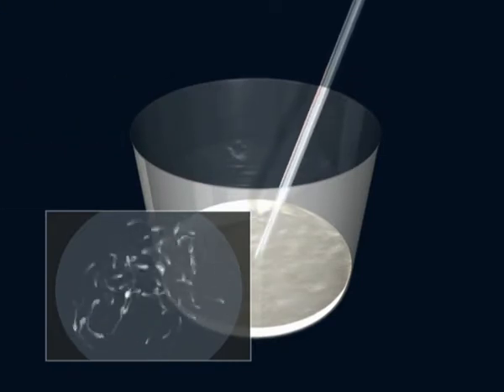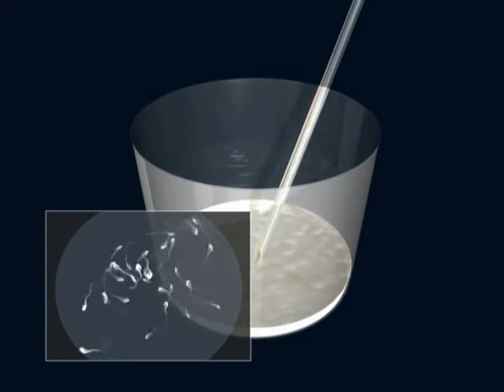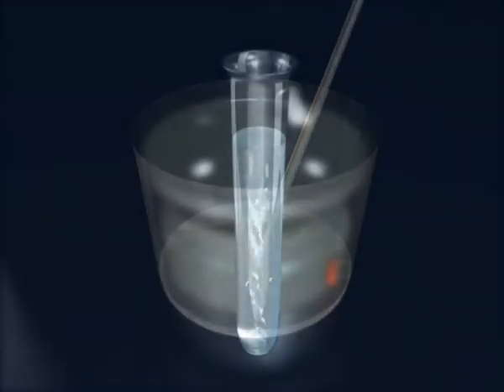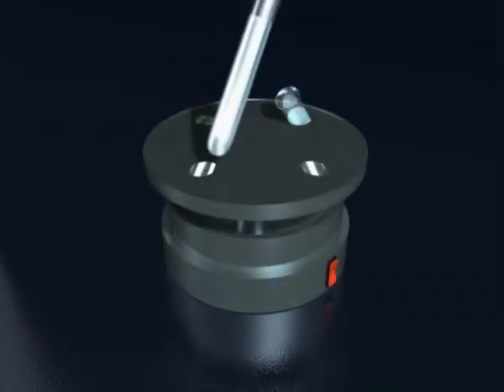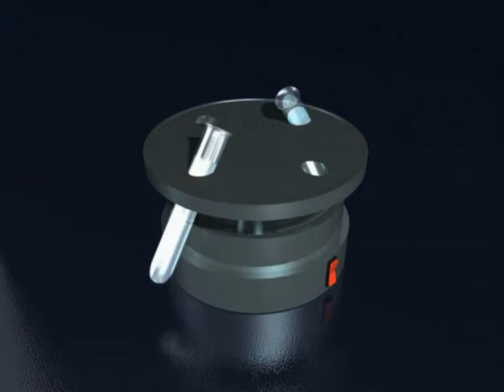Once in the lab, the semen sample is prepared. Then, in order to select the sperm with the best motility, test tubes are used in which media of different densities are contained that allow for the separation of immotile semen, seminal plasma, and cells of detritus that are also present in the ejaculate.